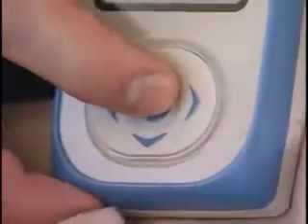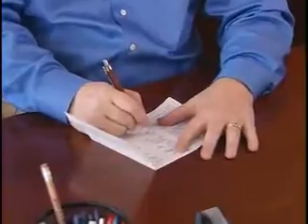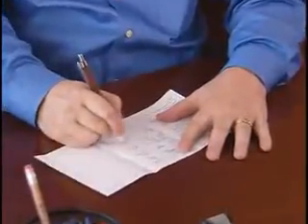As part of the event, the patient needs to write in the patient diary the time an event takes place, the activity they're involved in at the time of the event, and the symptoms experienced when the event is noted.